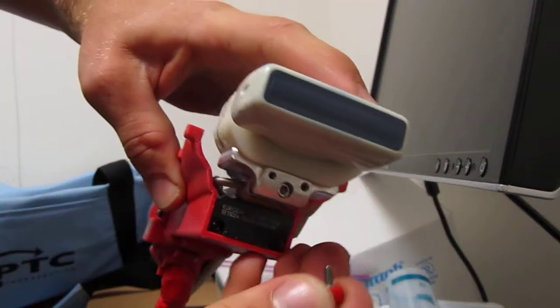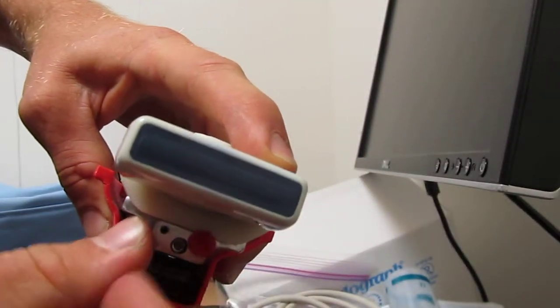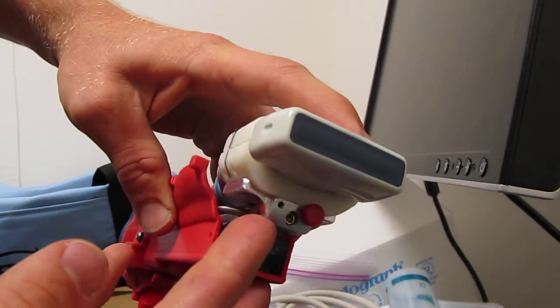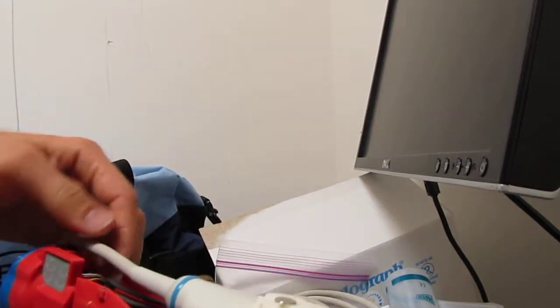Then we take the small plastic thumb screw, put it in one of the holes, and tighten it down. Now it's locked. We only need one of these screws to lock it down properly.